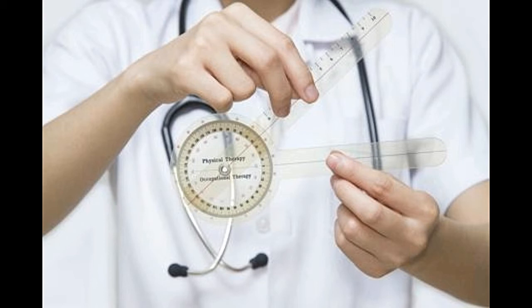These motions can be easily measured by a goniometer, provided you know the correct way to use it. A goniometer is a circular protractor with two extended arms. The stationary arm is fixed at zero degrees, whereas the rotational arm can move from zero degrees to 360 degrees.